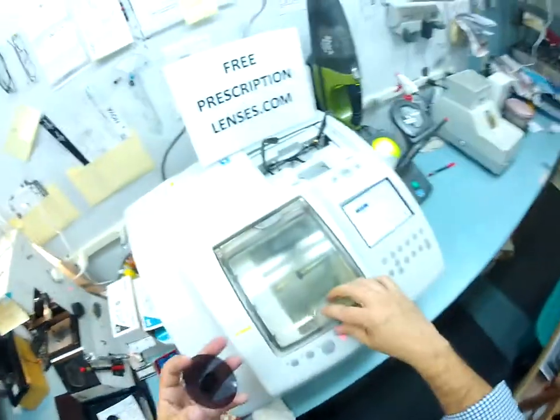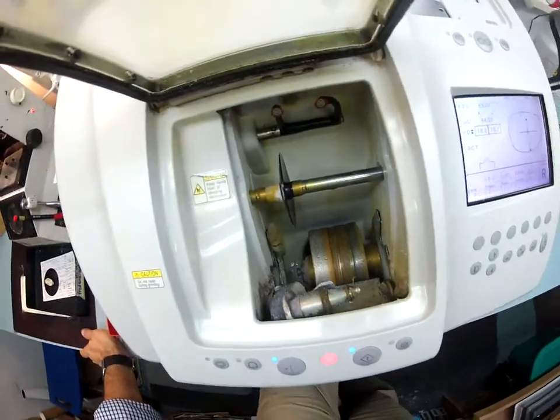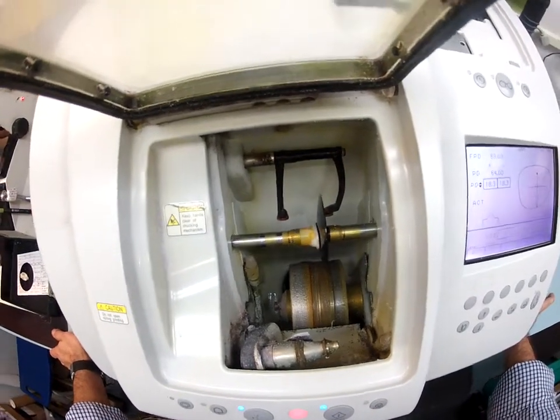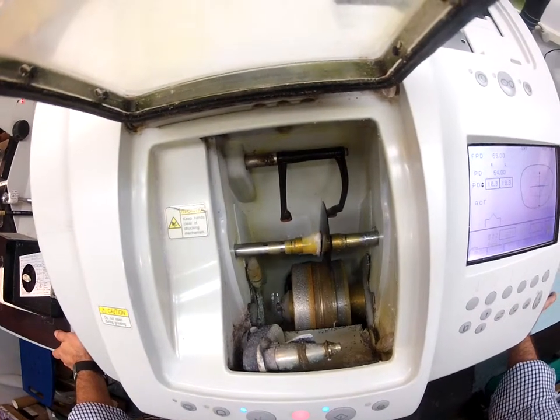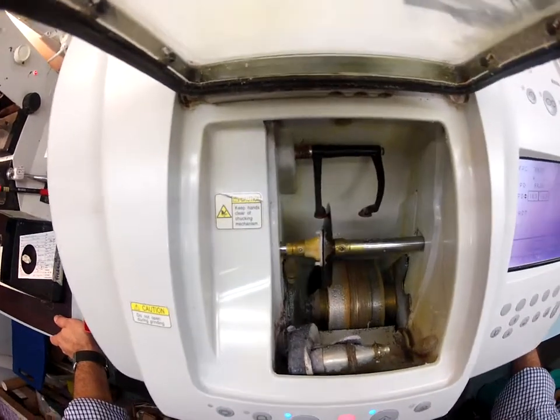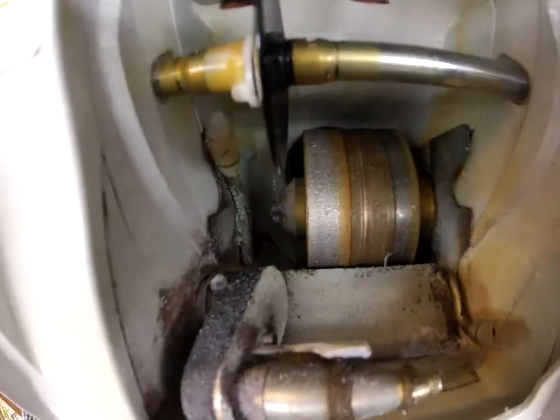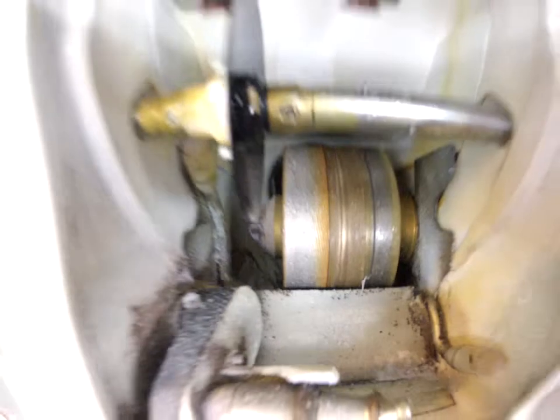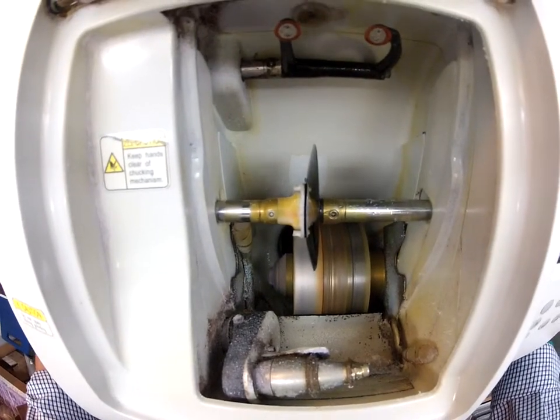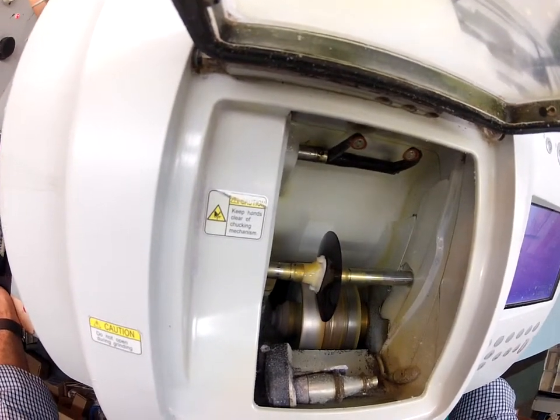I'm going to take your right lens and put it into the chuck. The first thing that's going to happen is these calipers are going to come down and trace the shape of your right lens to make sure it's large enough to cut out. It is tracing the concave side of the lens first, which is closest to your eyelashes, then it's going to move over and trace the convex side of the lens, which sits away from the face. All the while, the caliper is measuring the thickness of the lens to know exactly where to put the bevel. The cutting wheel is down here — it's the lighter color wheel on the left, like a heavy grit sandpaper that's going to grind away your lens material. The center wheel with the channel is what's going to put the bevel onto the lens so it stays inside the bevel of the frame. I just wanted you to see your prescription tinted gray lens as it touches down onto the cutting wheel.